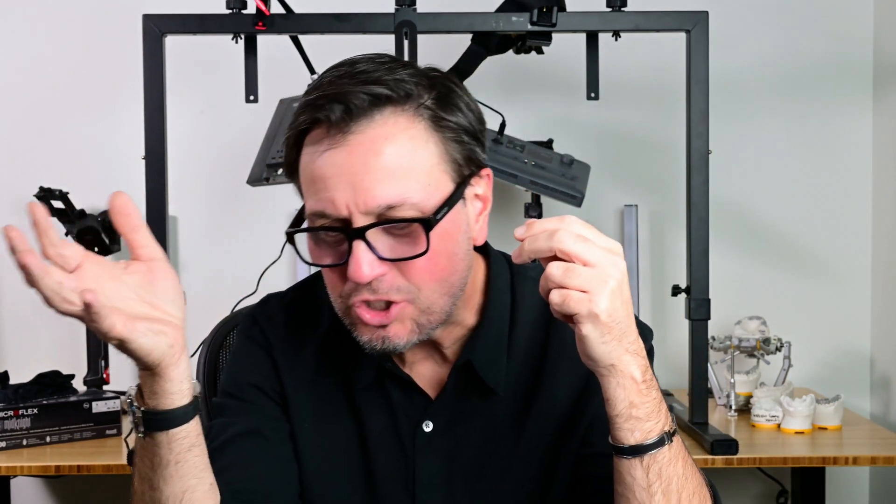Have you ever found you're rolling it up, it kind of unwinds, gets stuck to your gloves, unwinds as you're inserting it, or you put it in, you get it all packed in, and you have really not nearly enough, or you have way too much? If you have these problems, I have a new product for you I want to tell you about.